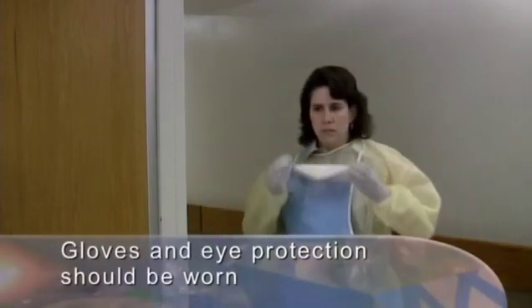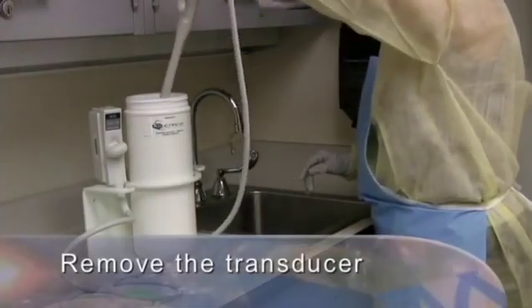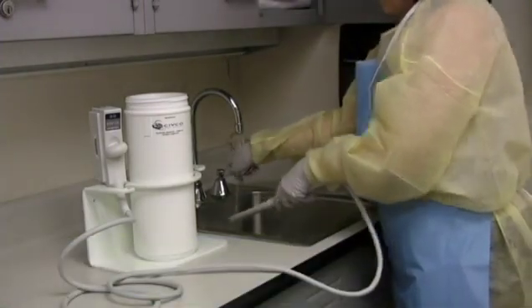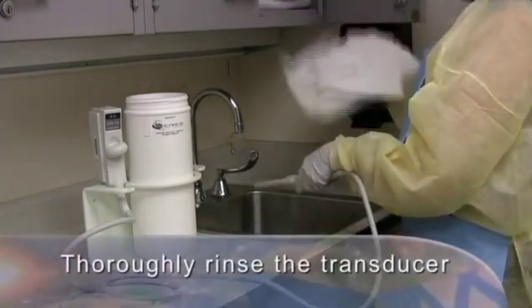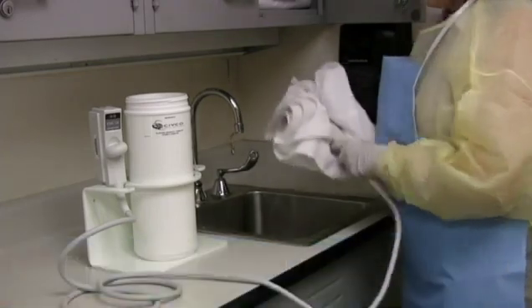We'll begin with the transducer being soaked in a disinfecting solution. At a minimum, gloves and eye protection should be worn whenever working with a disinfecting solution, particularly glutaraldehyde-based solutions. Remove the transducer from the disinfecting solution. The transducer should have been thoroughly cleaned after the previous use and before being placed in the disinfecting solution. Thoroughly rinse the sterilizing solution from the transducer and dry with a soft cloth.